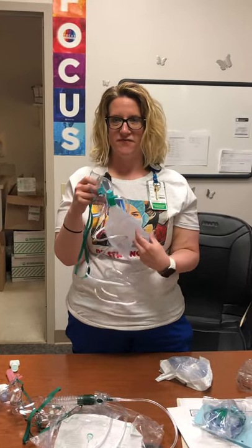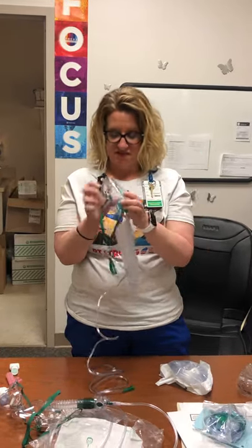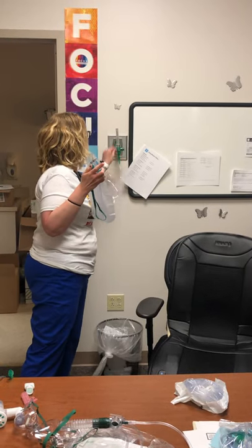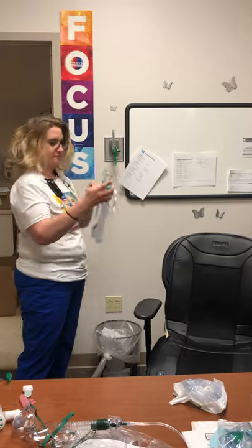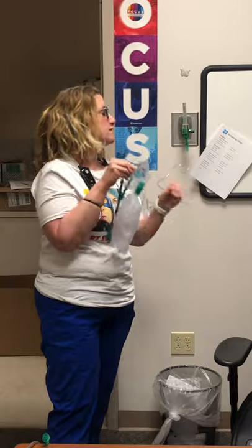That's why you never hear an RT say they're weaning a patient down from the non-rebreather — because you can't wean them off of it. The flow is somewhere between 6 and 15 liters based on how much the patient collapses the bag when they breathe in. I'll hook it up and run it at 6 liters and wait for the bag to inflate.